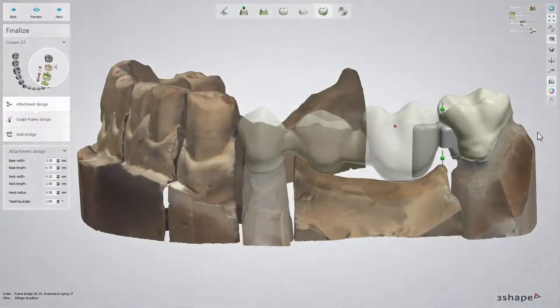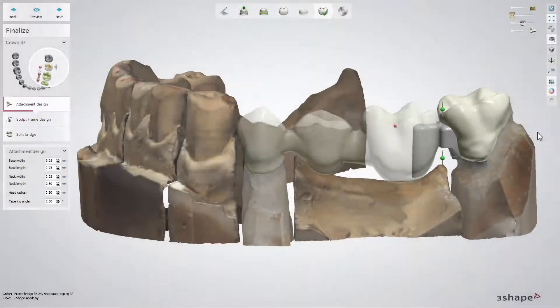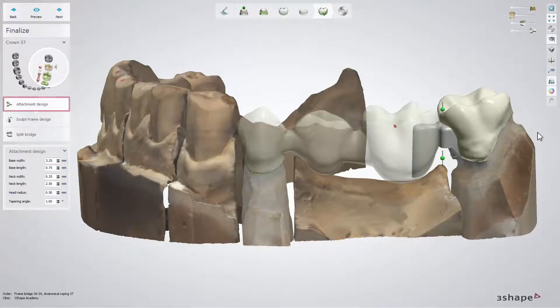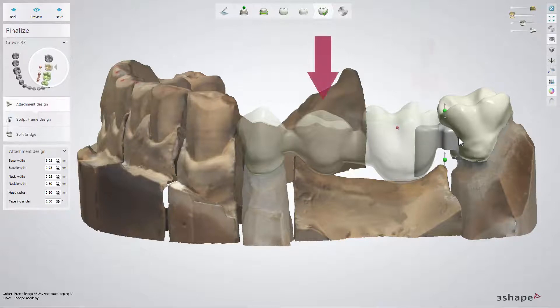In the finalized step, you can design and perform an actual split within three sub-steps. At the first sub-step, attachment design, you are about to construct and position the male part, which is going to be subtracted from the pontic to create the sliding mechanism. Remember that the attachment is locked with the same insertion direction as the female part, so it fits nicely in it after the male part is positioned.